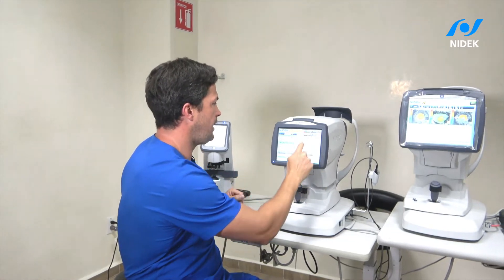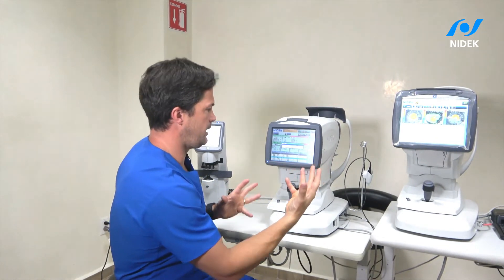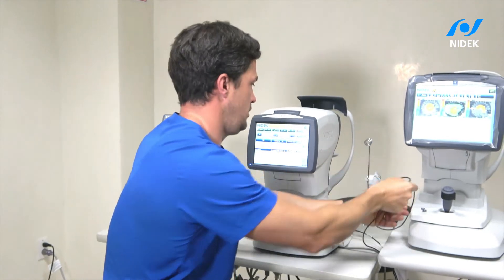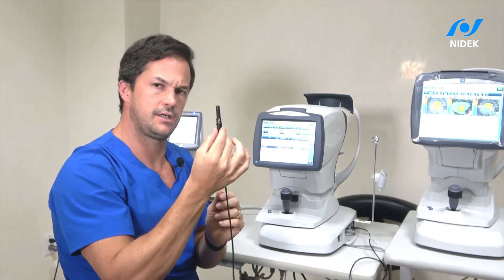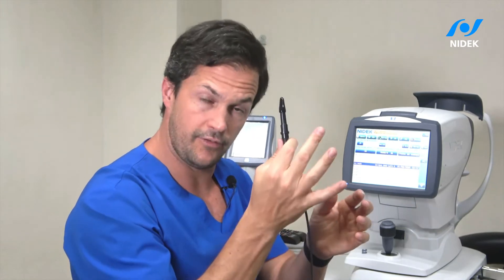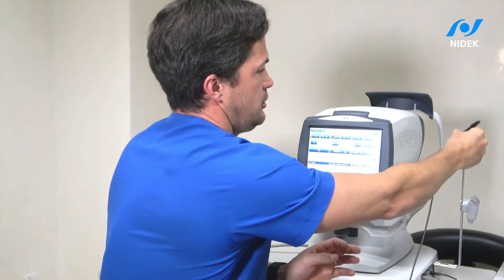If we go back to the list of patients and pick another patient, you'll see this amazing feature: I can measure the actual axial length by contact ultrasound. This means that if the lens is too dense and you cannot use the biometer optically, you can do it by contact — and if you know the technique, you can solve all the patients.